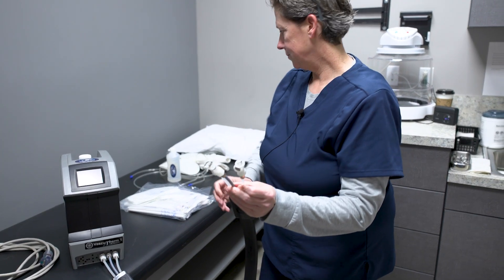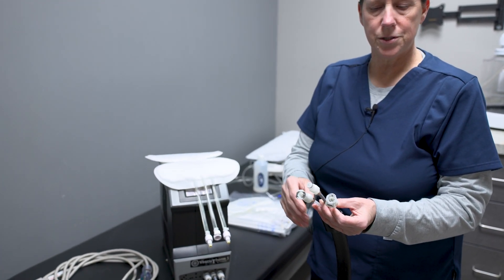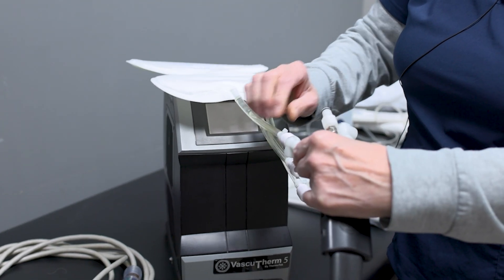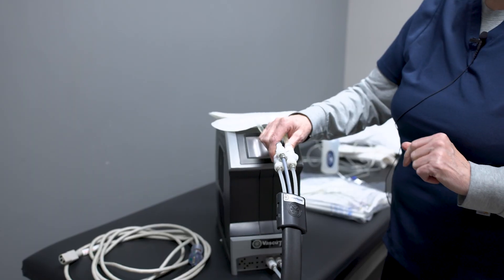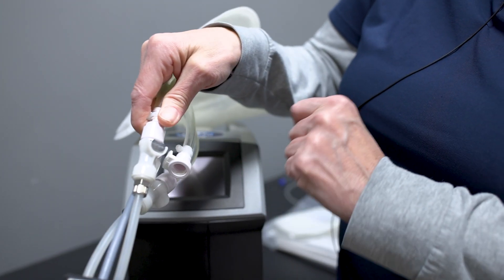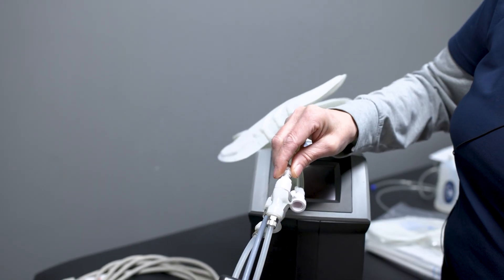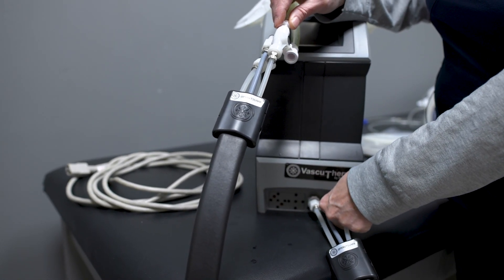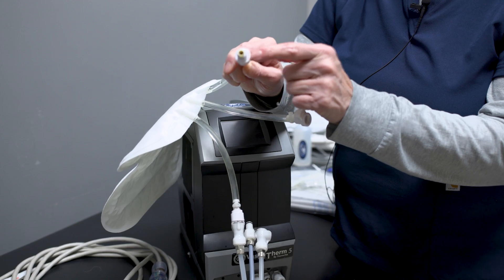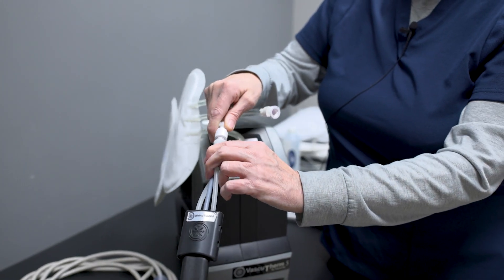At the other end, you're going to have three more connections. What's happening is the gray one has been filling this up with too much air, so we're going to intermittently use that. Same as we did here, we're going to push in — click — push in — click. To get these out, it's the same system at the base of the machine and the hose. This silver is a button, so you push that down, it will release and it comes out. Gingerly, when you're doing these snaps up here, just push down and then pull out. If you pull out too quickly without it being pushed and unclasped, this part right here will actually end up inside the machine and it will become a watery mess. So just take your time, push in, hear that click, and then pull out gingerly.